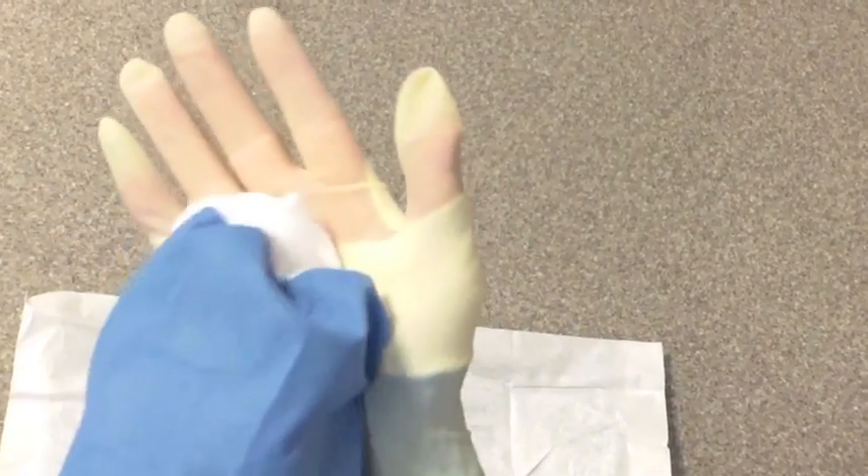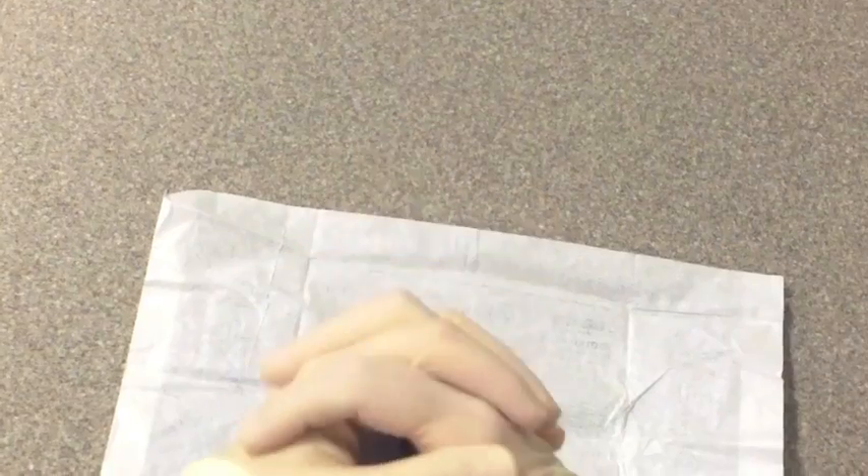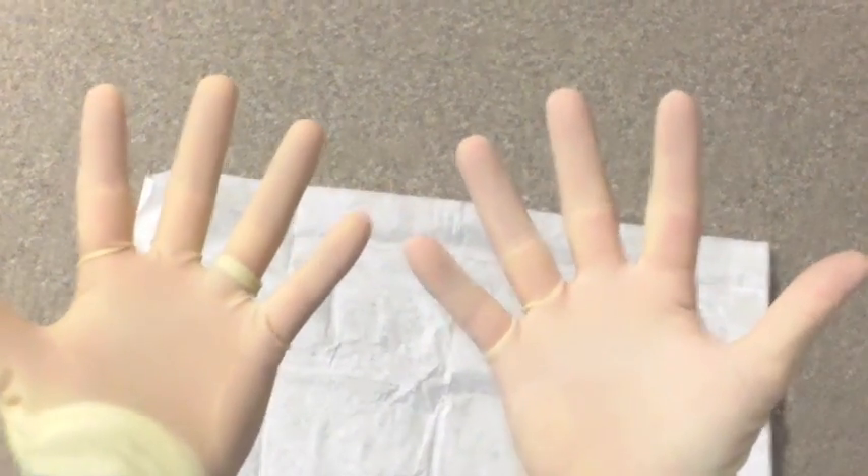Adjust your fingers using your left hand. To place the left hand glove, first pull your sleeve down so that just the fingertips come outside your gown. Grasp the left-sided glove with two fingers and spread open the cuff. Place your hand inside the glove, at all times keeping it on the inside of the glove and not the outside.